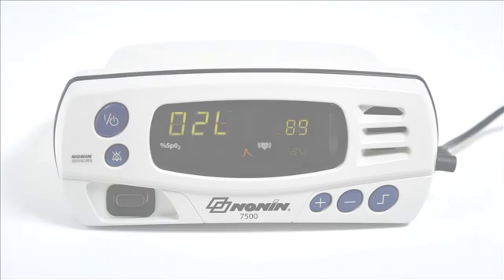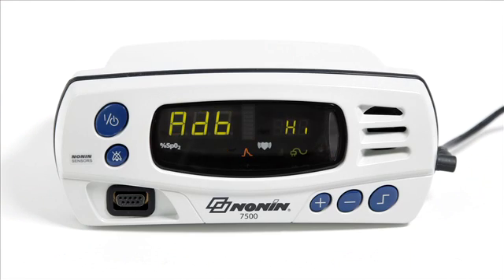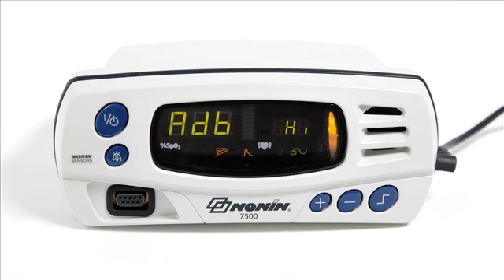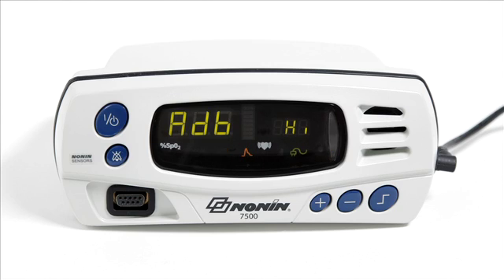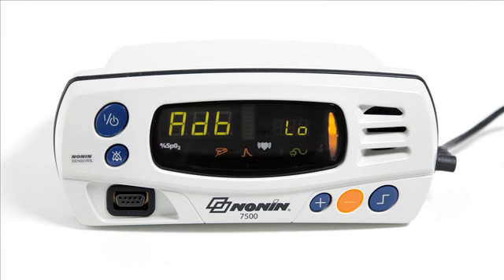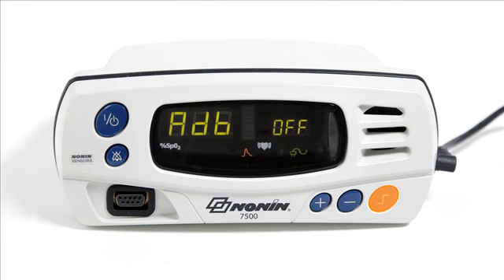After setting alarm limits, you will proceed to audible alarm volume, which can be set to low, high, or off. Select the desired setting with the plus or minus button and confirm by pressing the limits button.